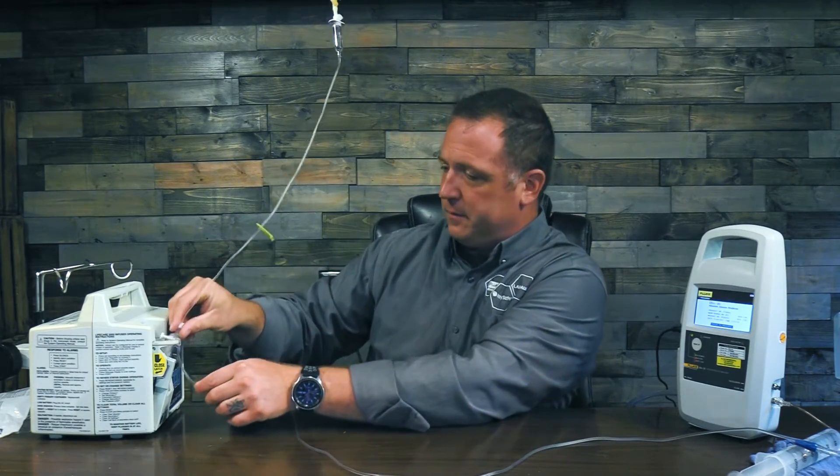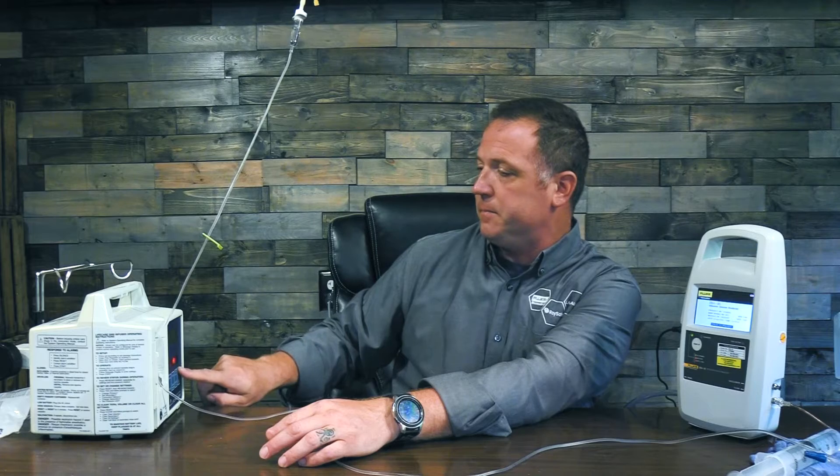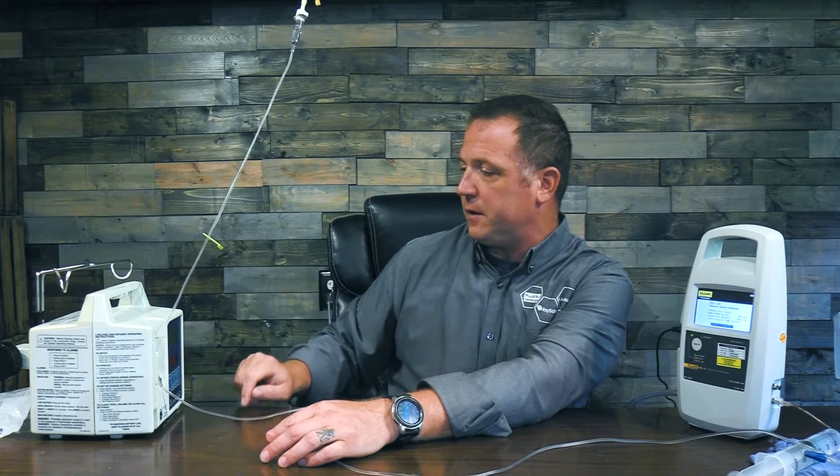We're not going to talk about specifics — we just want you to open that service manual. So I'm going to turn on my infusion pump and put my cassette into it. I'm going to select a rate — for today we're just going to select 150 milliliters an hour — and enter, and we're going to do a volume of 10 milliliters. Again we would reference that service manual. No secondary dose.